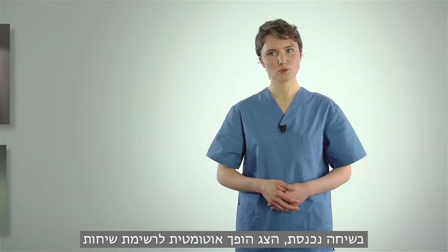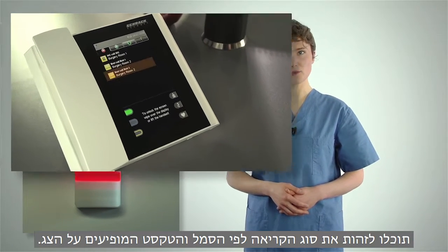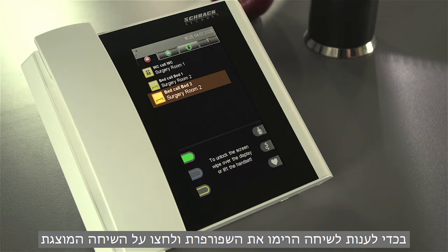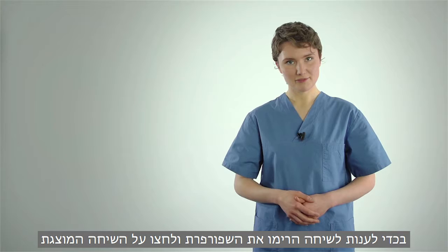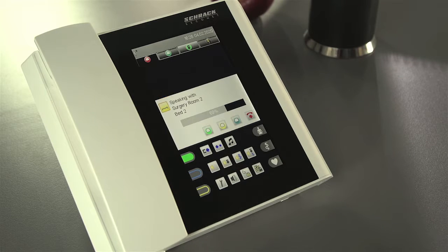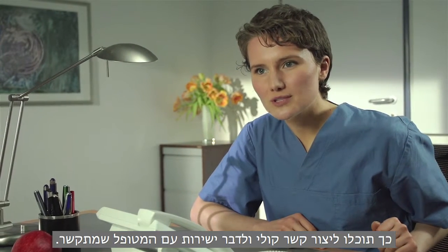With an incoming call, the display automatically switches to the call list, and you can identify the type of call from the displayed symbol and text. To answer the call, lift the handset and press the displayed call. This lets you speak directly to the patient who's calling.